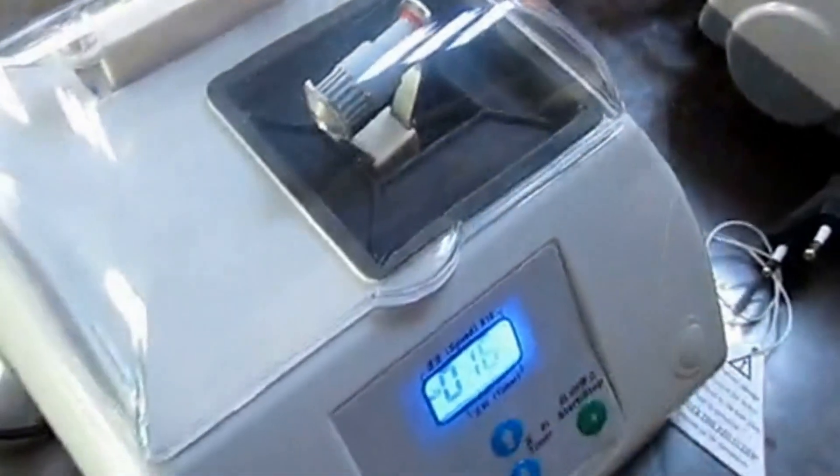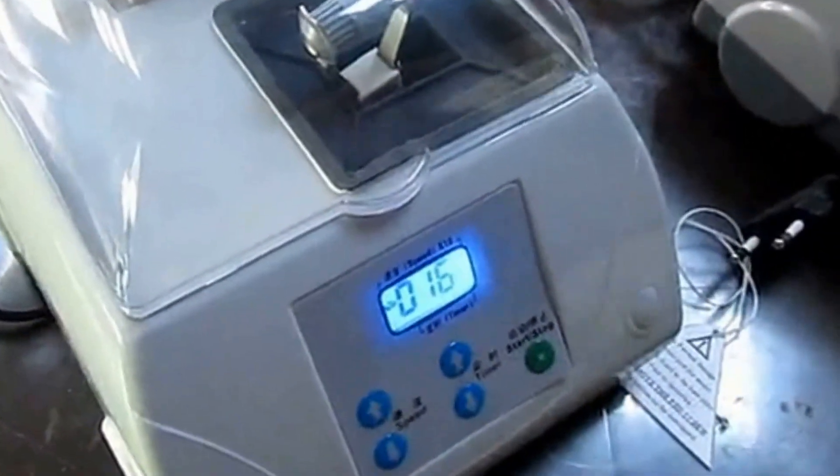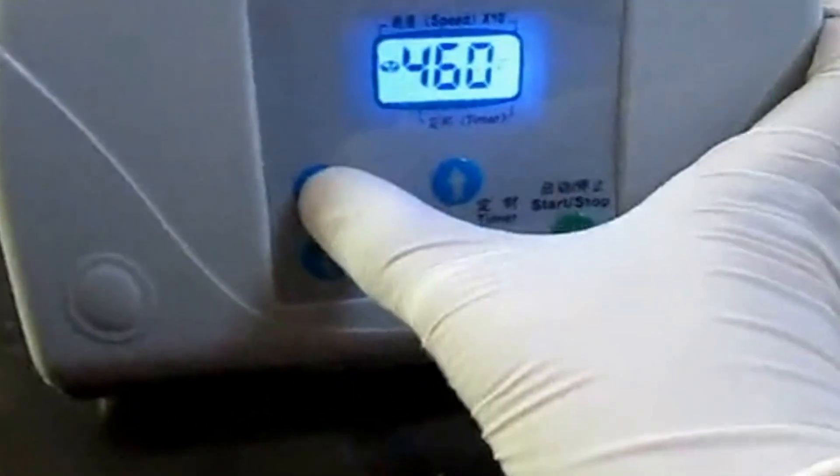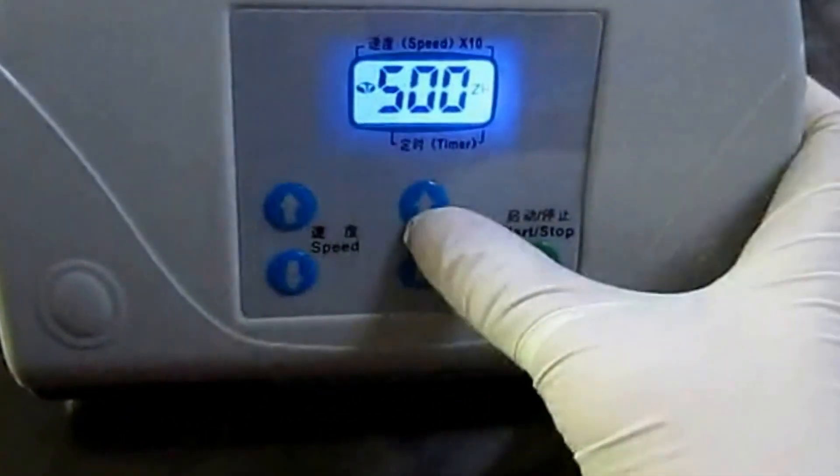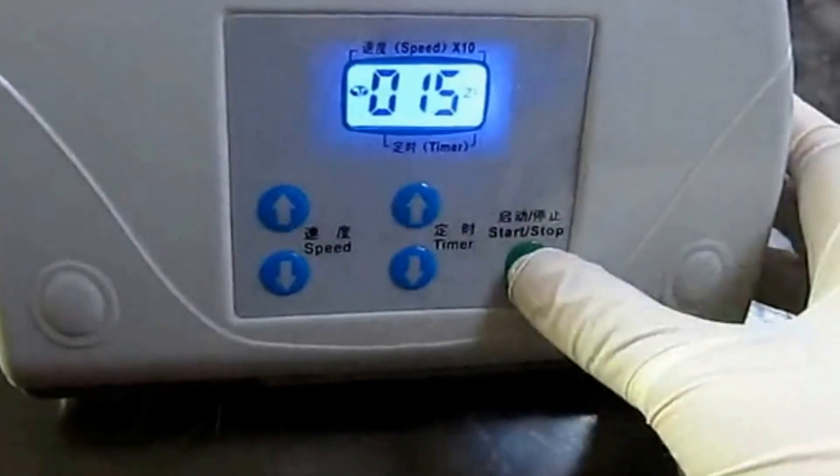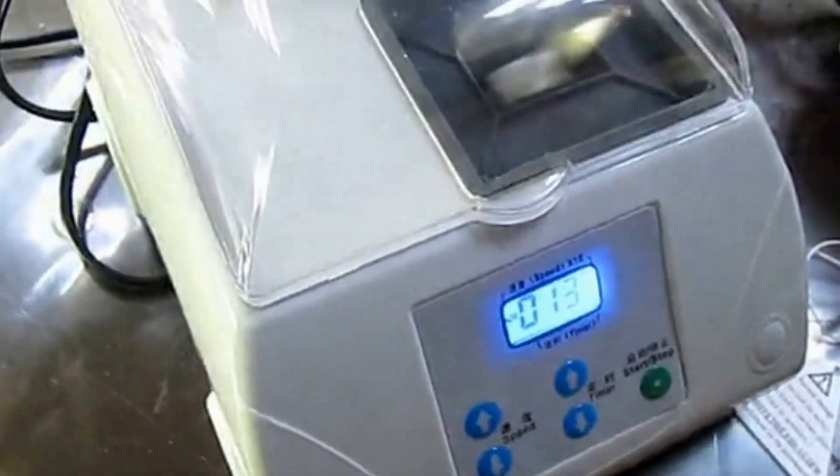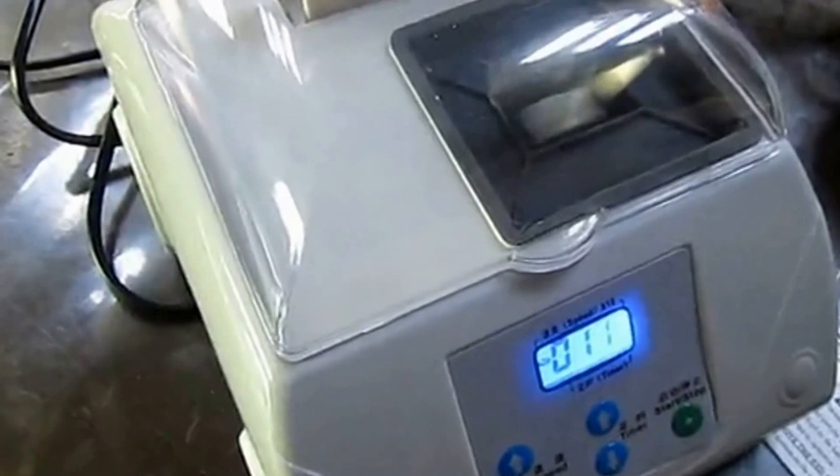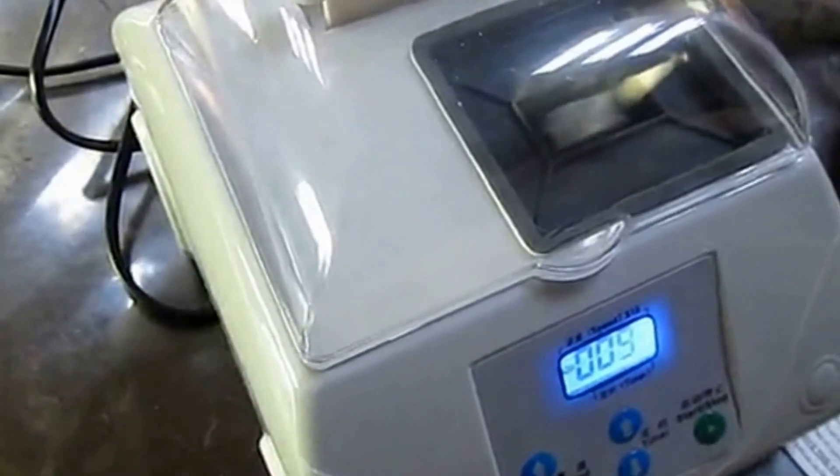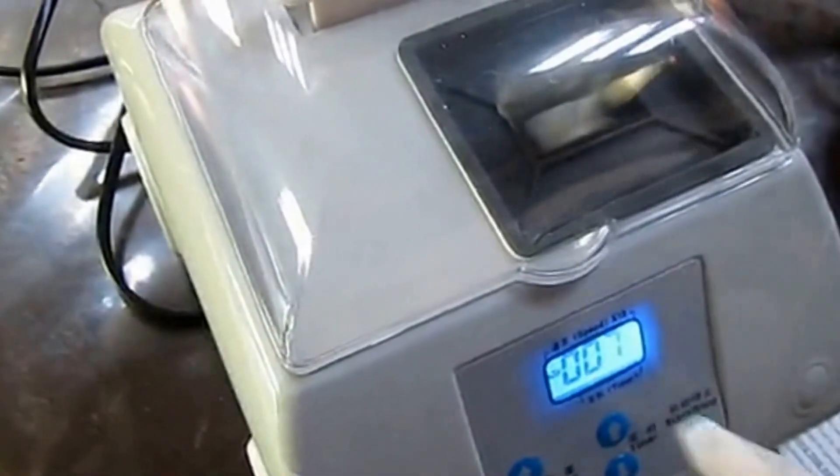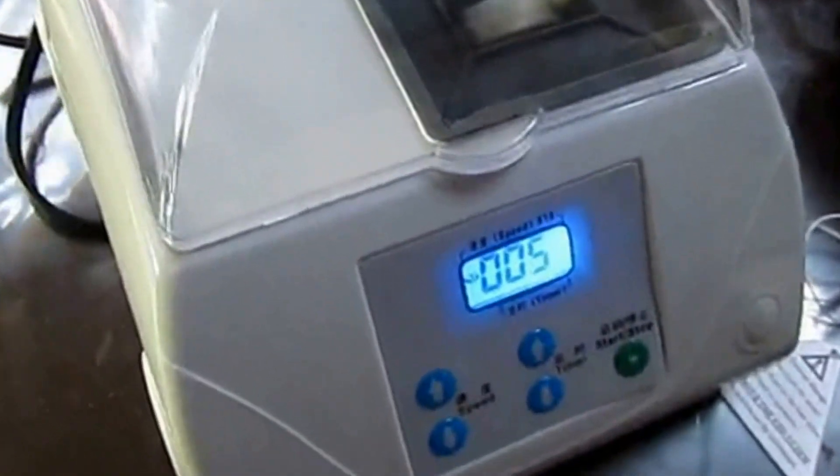Then press the up and down buttons to adjust the time and speed as needed. The time will decrease automatically, and when it reaches zero, the device will stop.